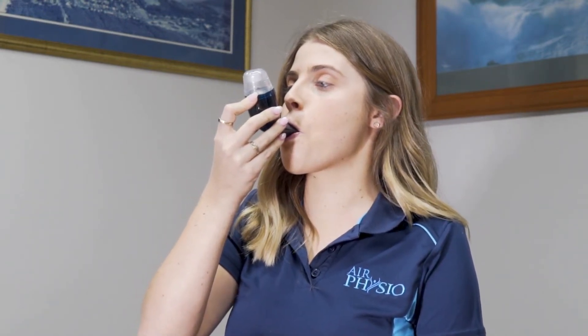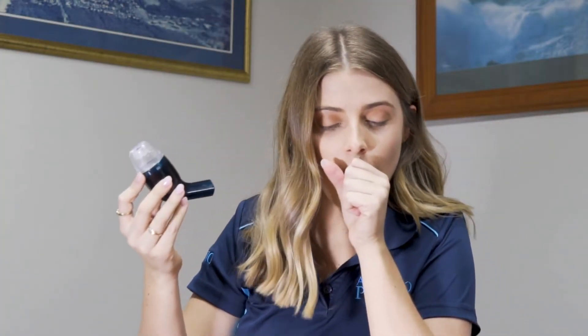By many of our customers, after using the AirPhysio device for five minutes, some people tell us they start coughing straight away, whilst others can take between five minutes to 30 minutes or an hour before they start coughing. Some people don't actually cough at all within the first couple of hours.